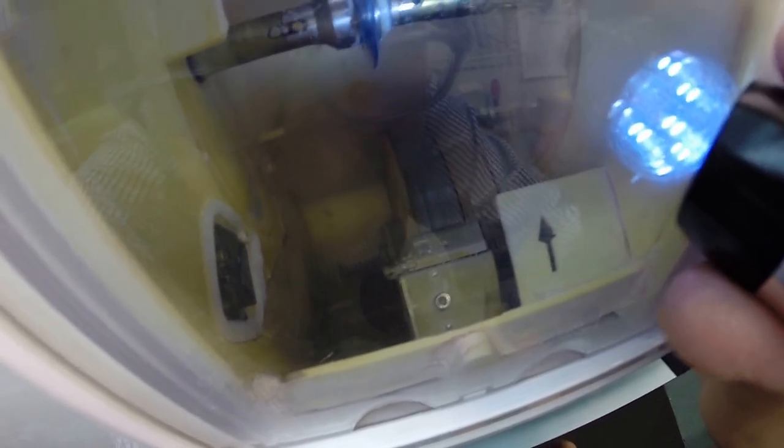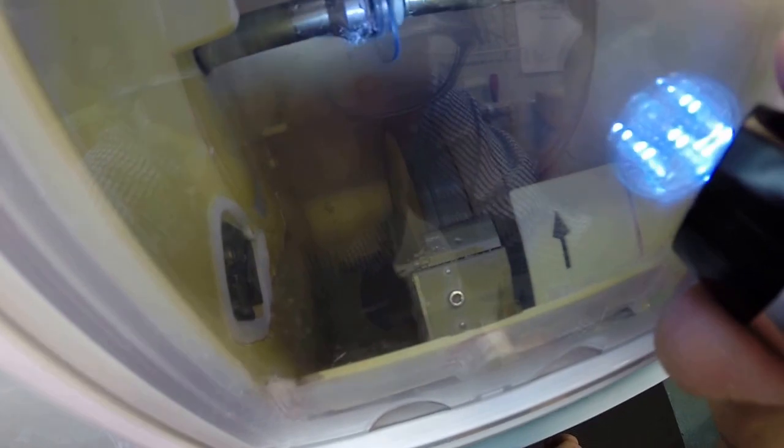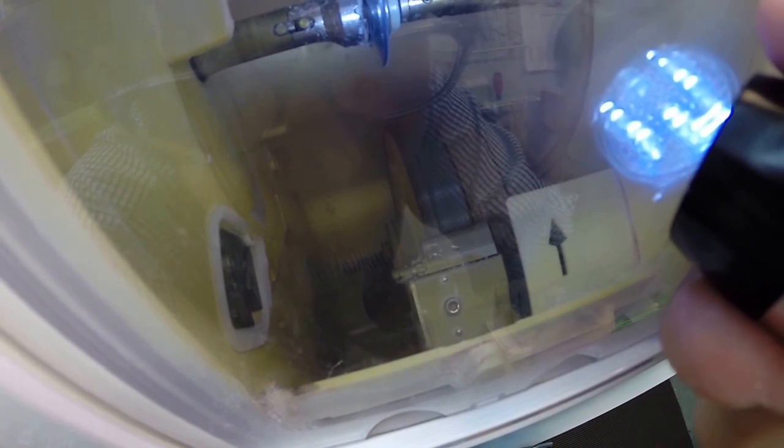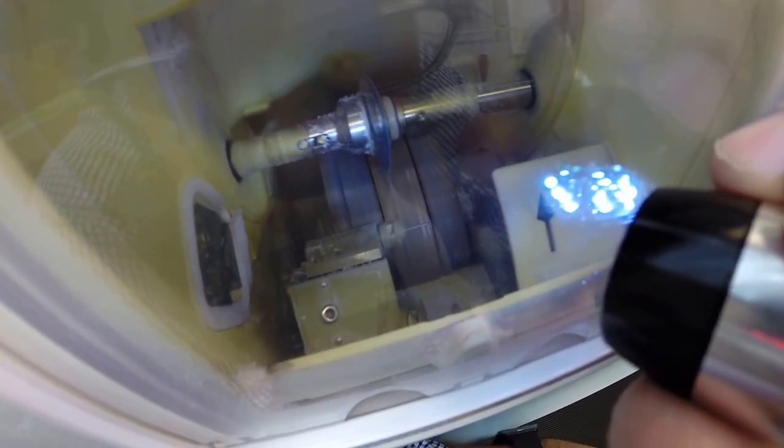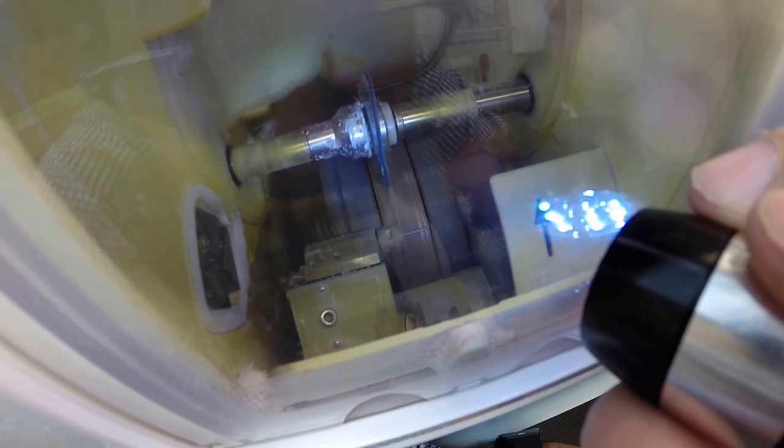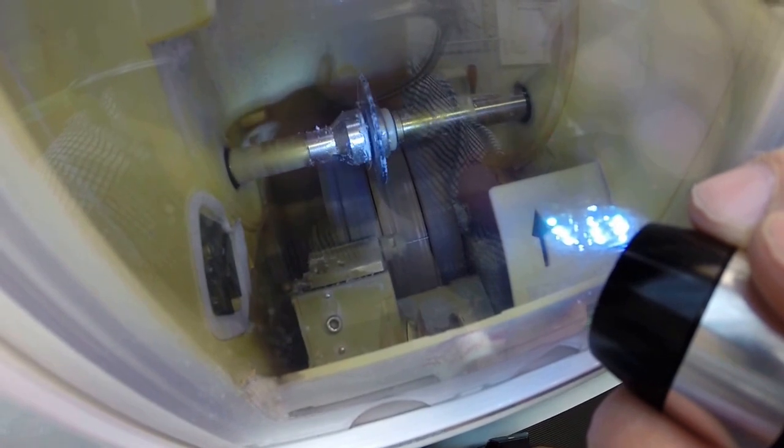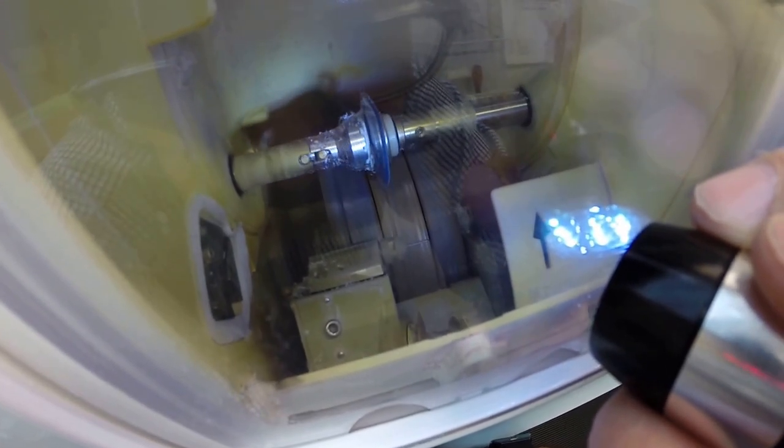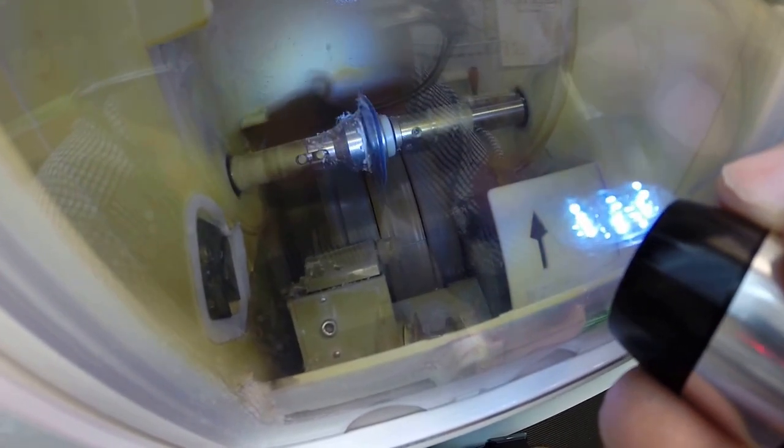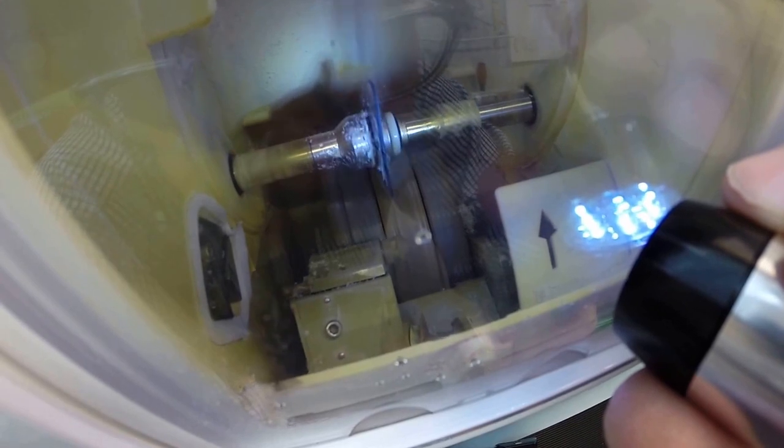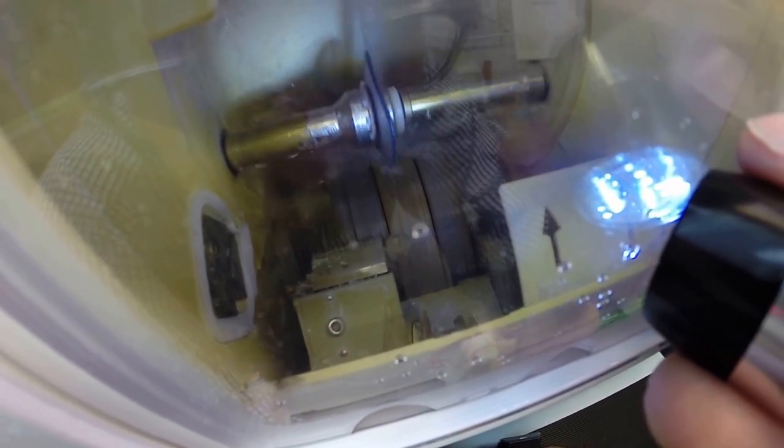Now again it's just double checking its own measurements to know exactly where to place the bevel. If you notice your lens is completely flat just like a nickel. If I were to take it out now it would stand up on the counter on its own but now it's going to get the knife-like bevel cut into the lens. A very dull knife just like me but a knife-like edge nonetheless. In fact your lenses will be so sharp you'll be able to cut through a piece of wet tissue providing that you soak the tissue in a bucket of water overnight. Then you might be able to cut through the tissue. Now as you've seen water has begun spraying on the lens. It does this for the last 20 seconds of the cutting cycle just to wash away any optical debris that may be left over on the edge of the lens.